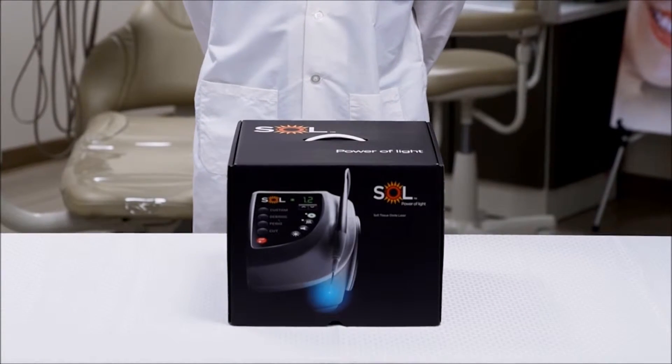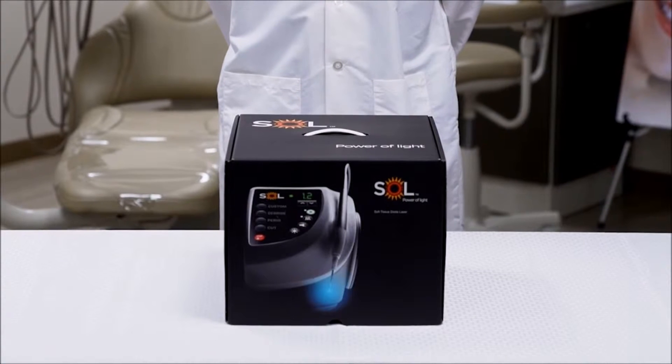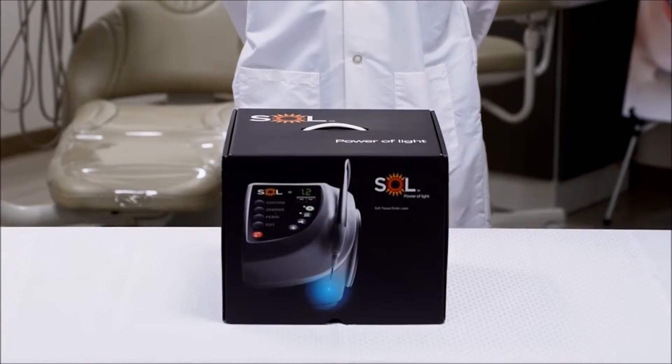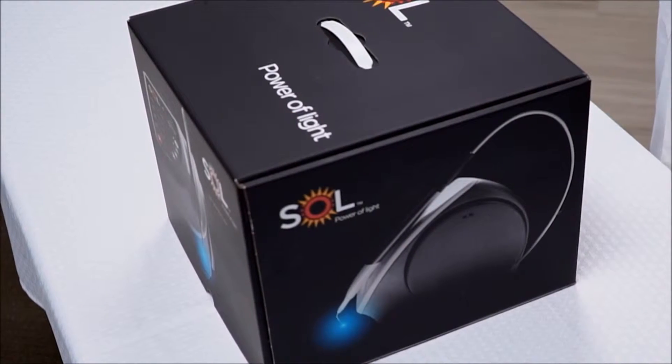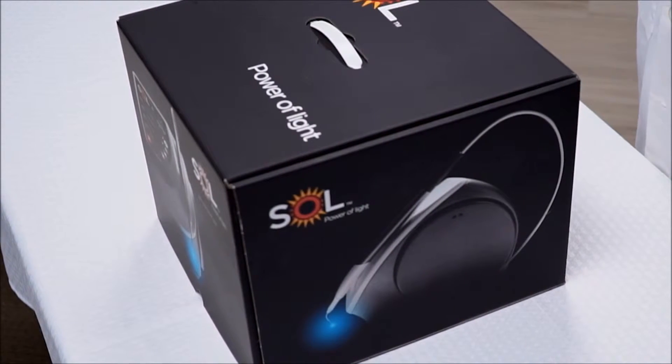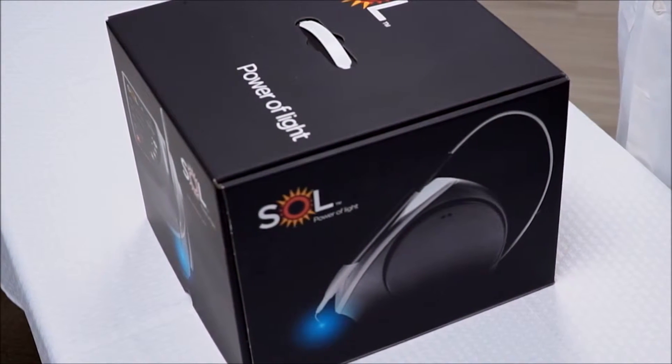Today I'm going to briefly go through how to unpack your Sol Laser. I'll go through some of the kit contents so that you are comfortable with everything that's in here and you can get started using this product right away.